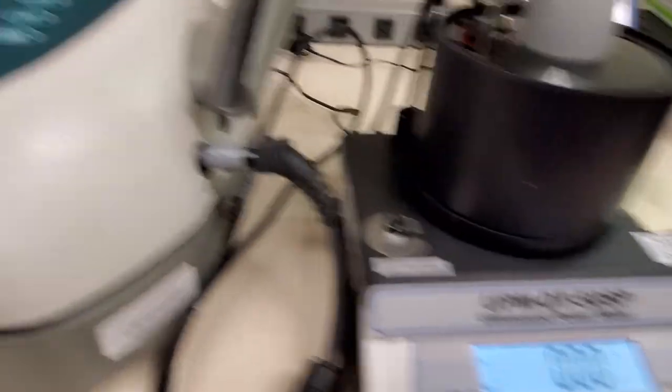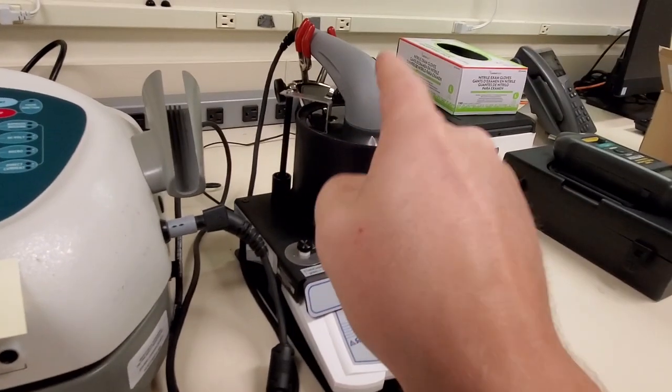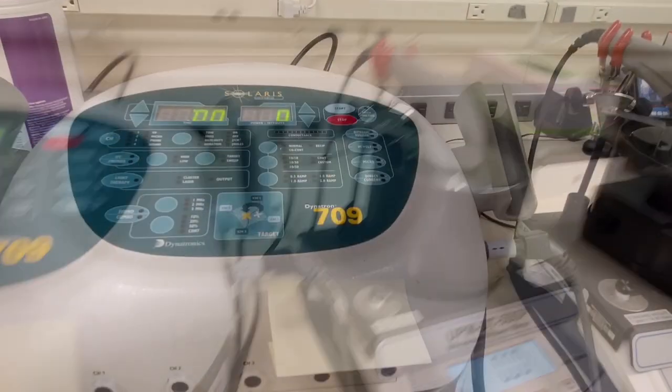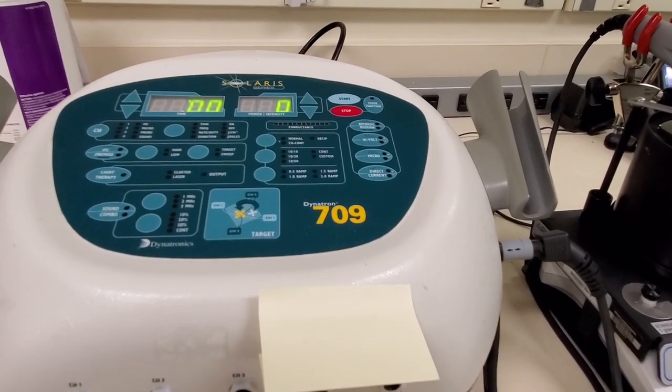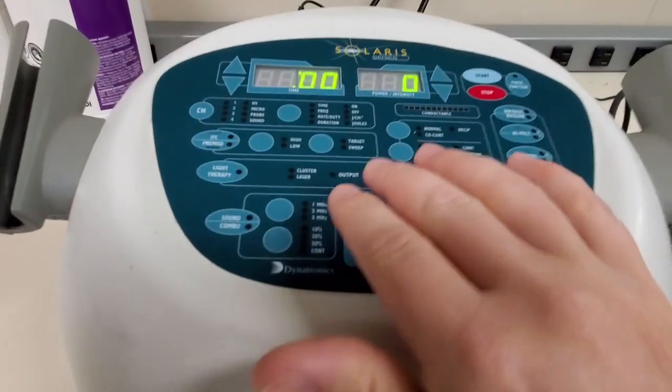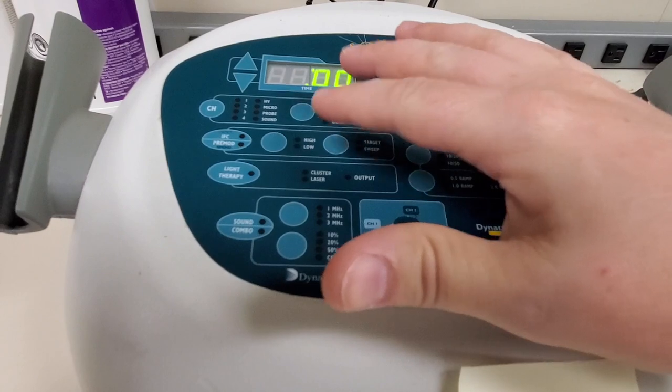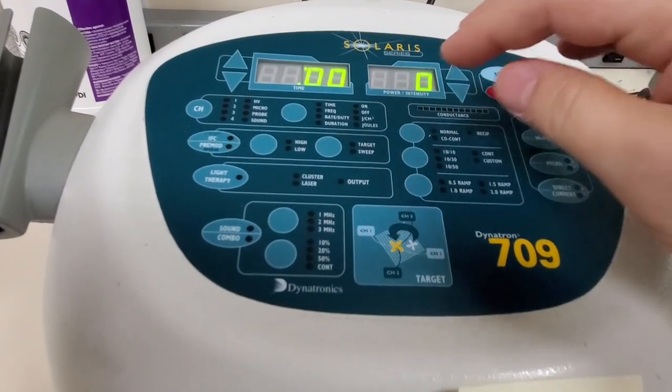We zero out the scale and then we can measure the watts for this particular head. Now what exactly is ultrasound therapy?